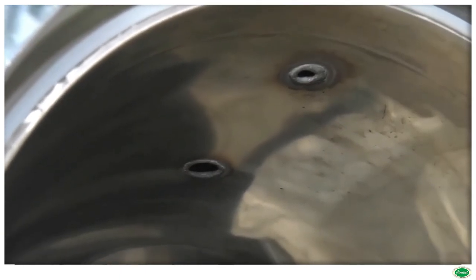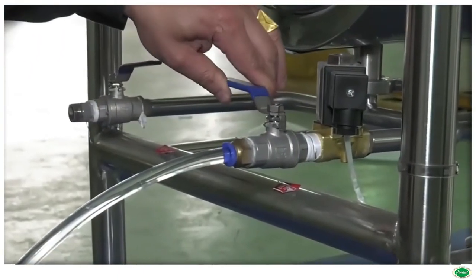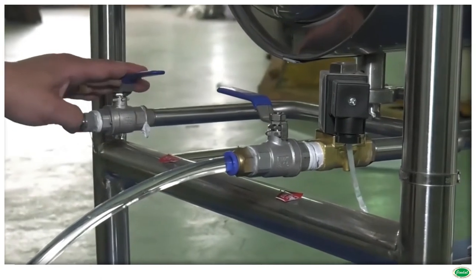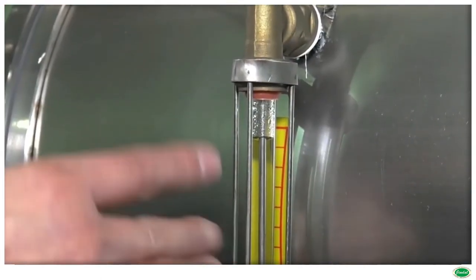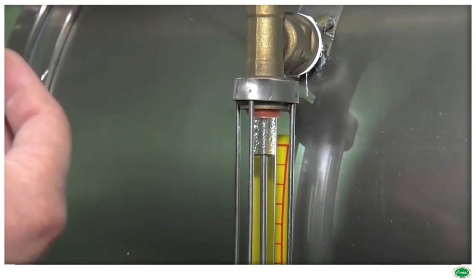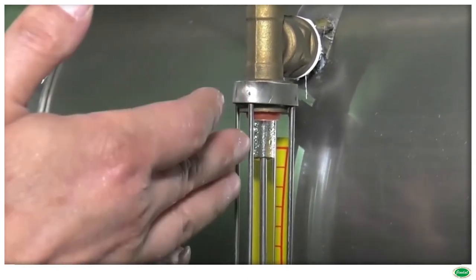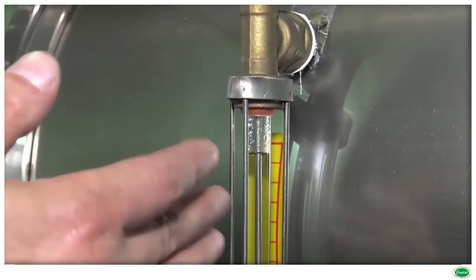The inner chamber and steam jacket are made of heavy gauge stainless steel sheet with leak-proof argon welding. The sterilizer has a single-piece door made of stainless steel plate. The backplate and ring are also made of thick stainless steel.